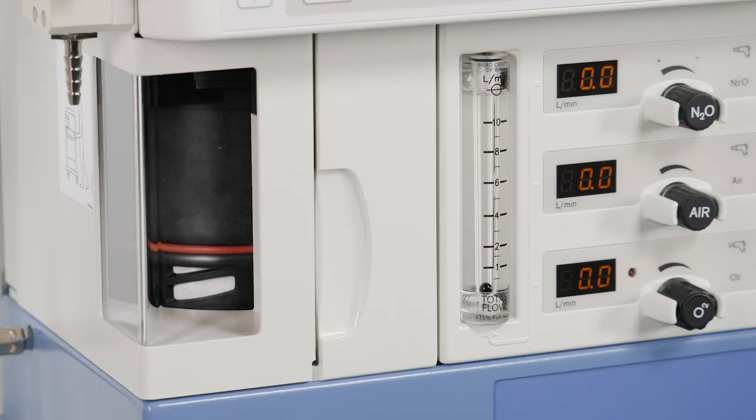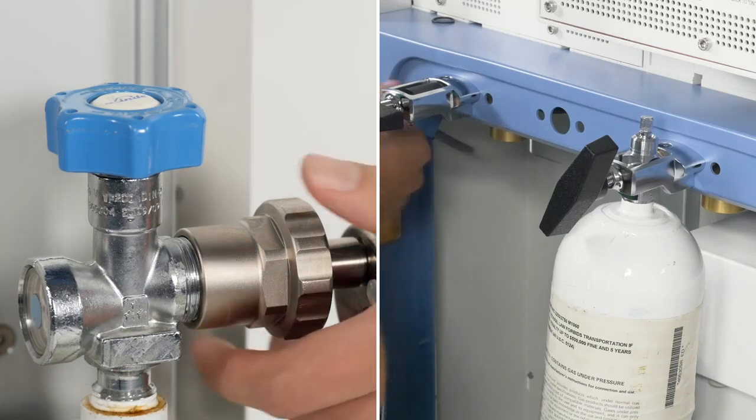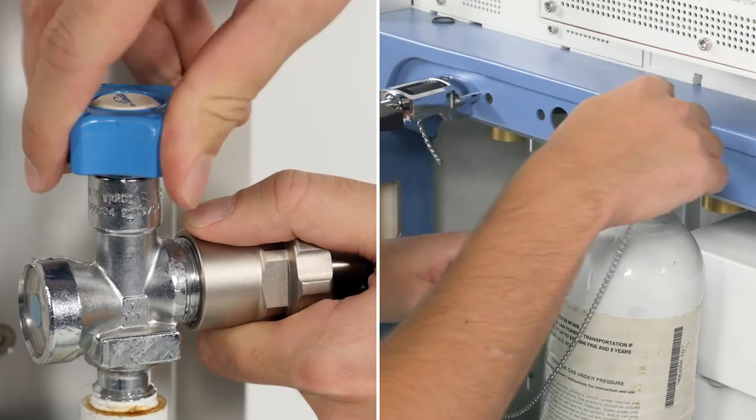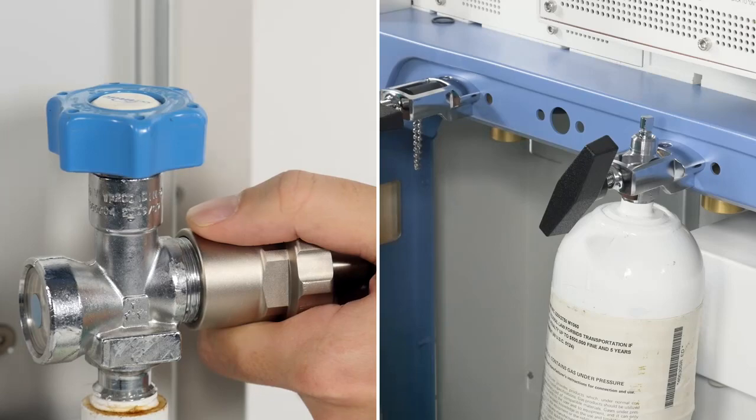the piston ventilator will continue to operate, giving you the necessary time to open any gas cylinders without having to ventilate the patient manually in the meantime.